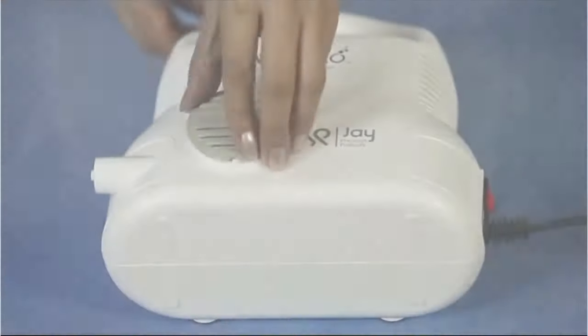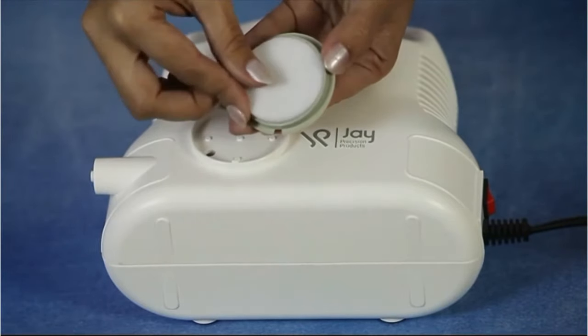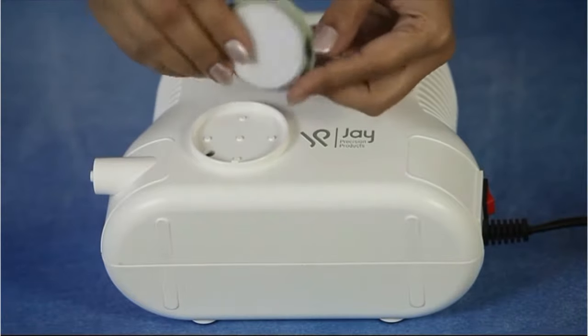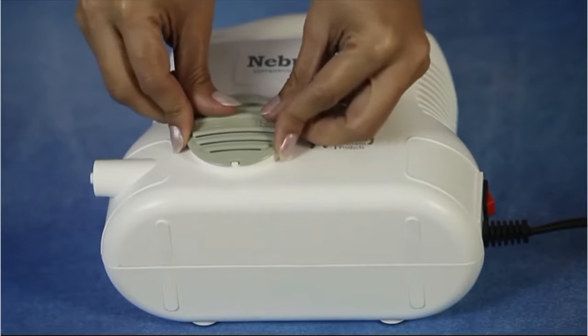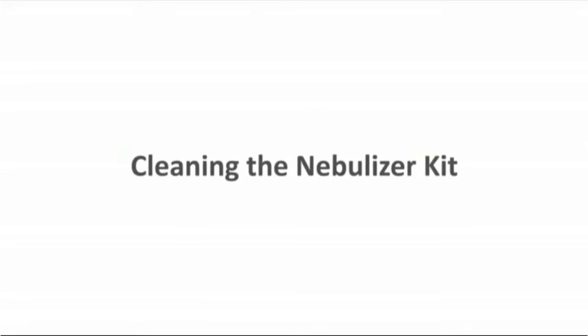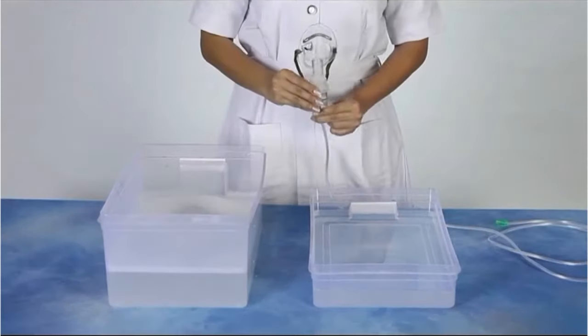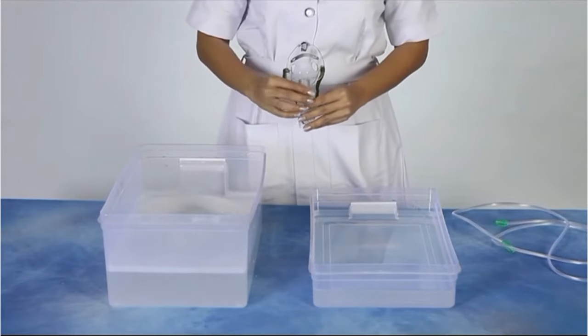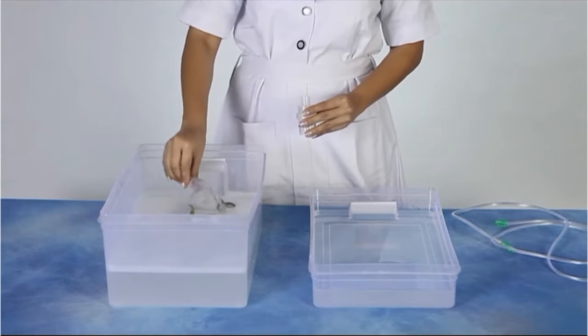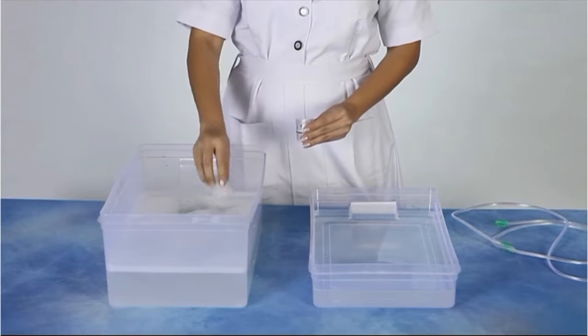The filter should be changed when it discolors completely. Cleaning the nebulizer kit: for cleaning, remove the tubing, detach the mouthpiece or mask from the cap of the medication chamber, open the cap by turning it counterclockwise, and remove the baffle.